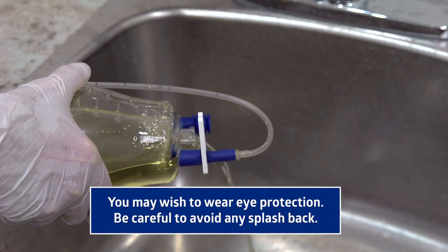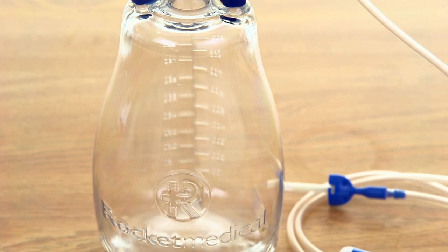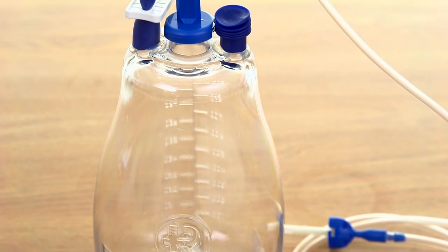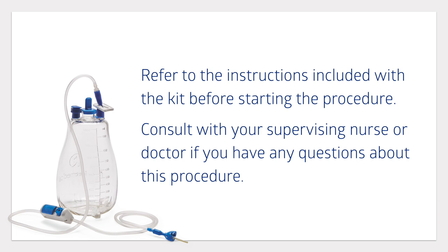You should now be ready to perform the pleural drainage procedure using the ROCKET IPC pleural drainage system. Be sure to refer to the instructions included with the kit before starting the procedure and consult with your supervising nurse or doctor if you have any questions about this procedure.